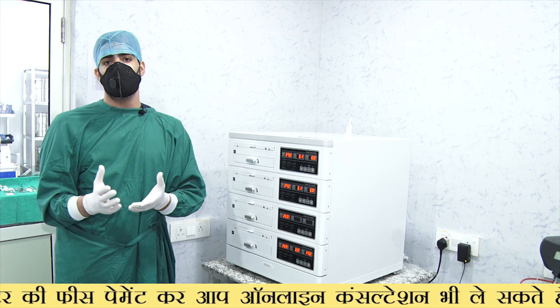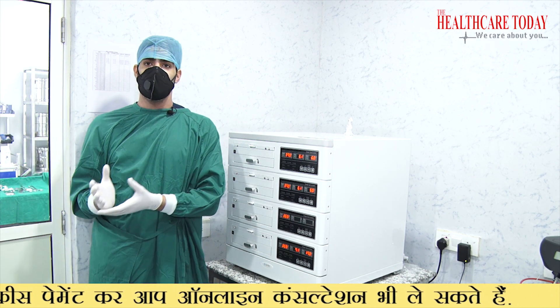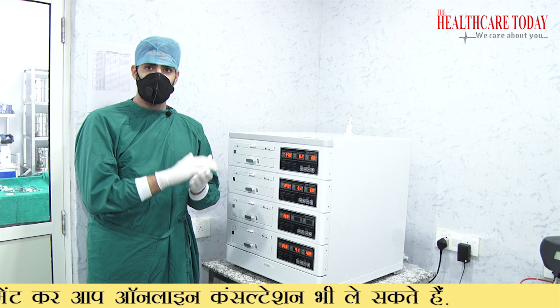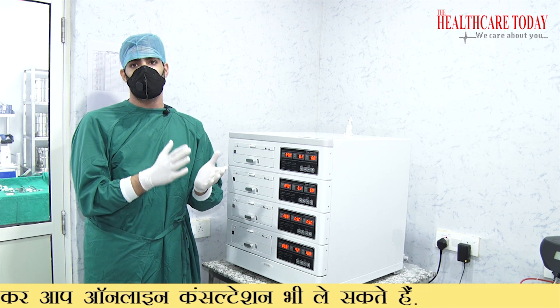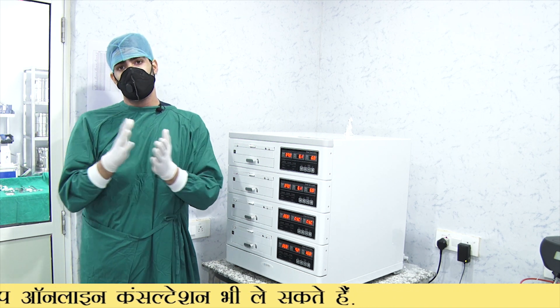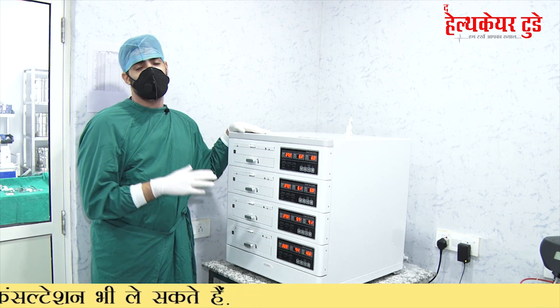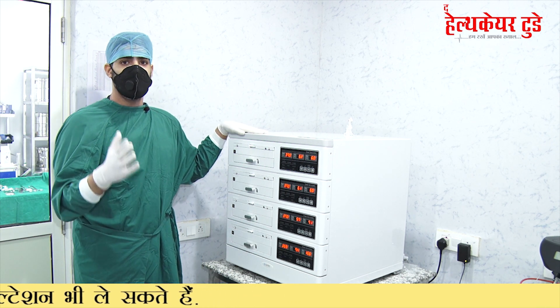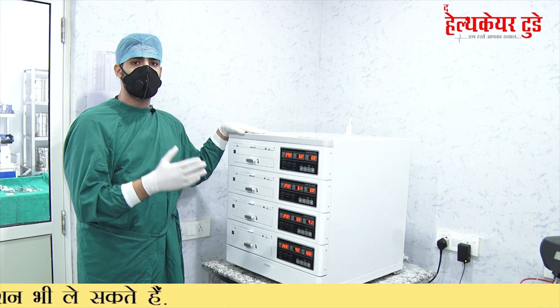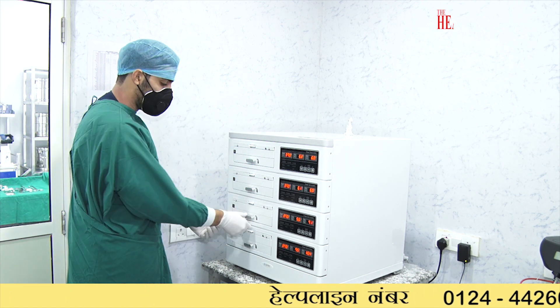After doing conventional IVF or ICSI, we culture the embryos in the incubator, where they grow from a day one PN stage all the way to a day five blastocyst stage. The embryos can survive in the incubator for up to five days, after which they either have to be frozen or transferred into the female patient.